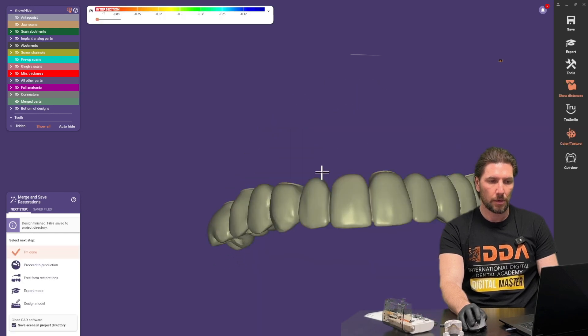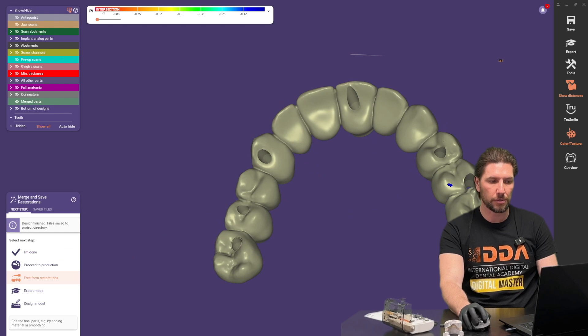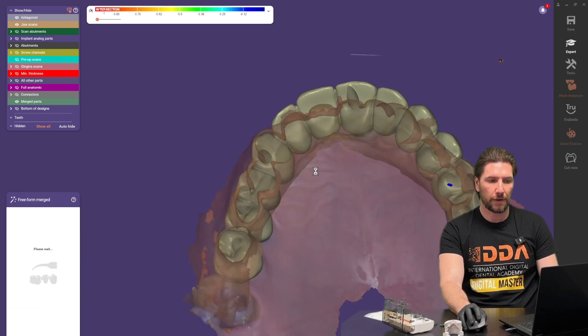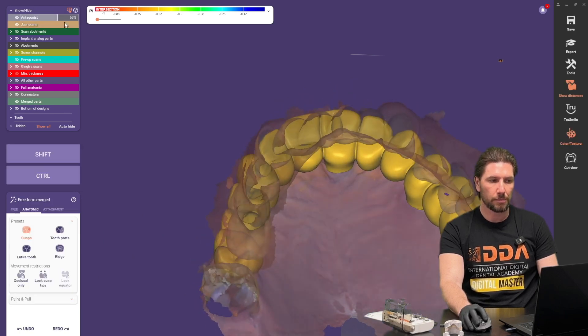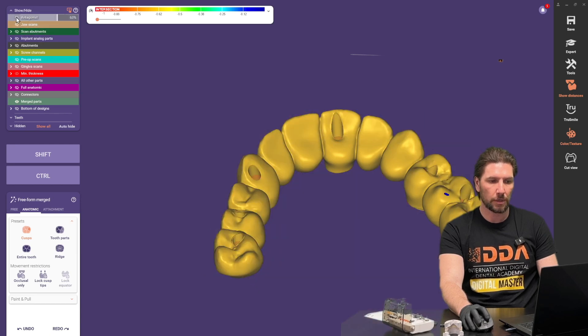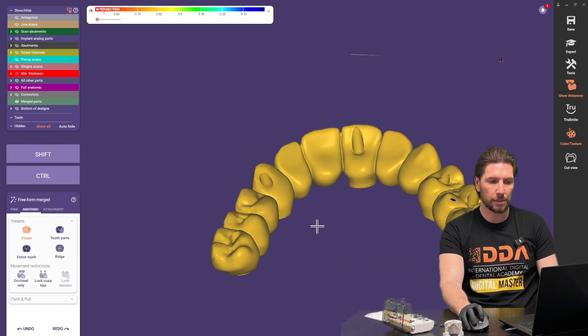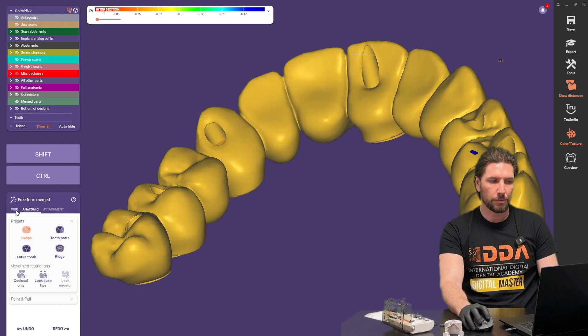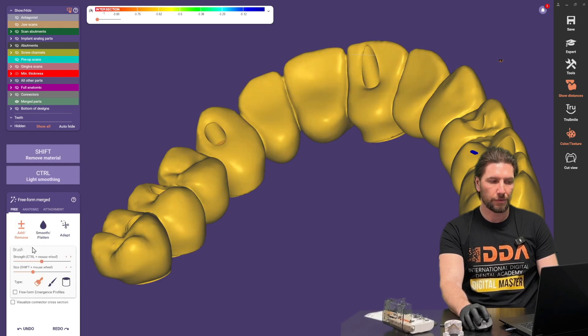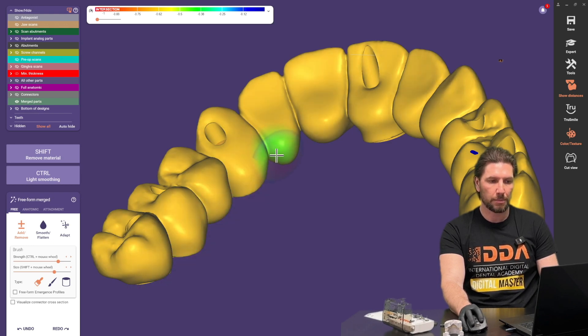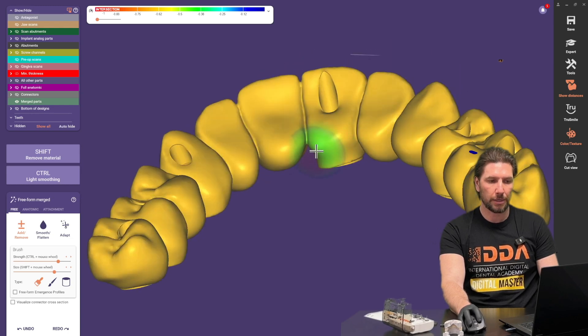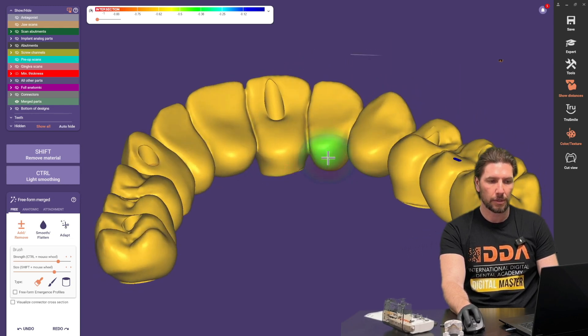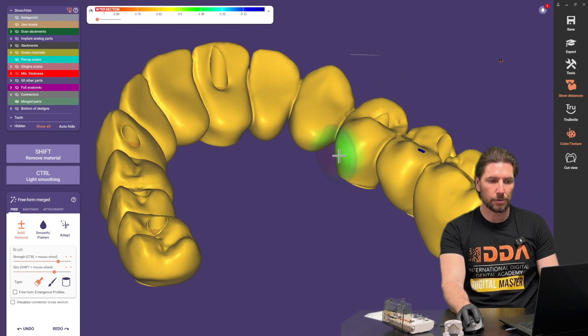So there we've got this temporary bridge that I'm just going to go freeform the restorations to make a final little adjustment that just makes me happy in terms of strength so if we turn off the jaw scan and antagonist here what I'll do is just go on freeform turn the strength and the size really high up and bulk this out on the platal side now keep in mind that you can only do this within a limit before it starts getting really quite bulky but I like to do this just to increase the strength a little bit.